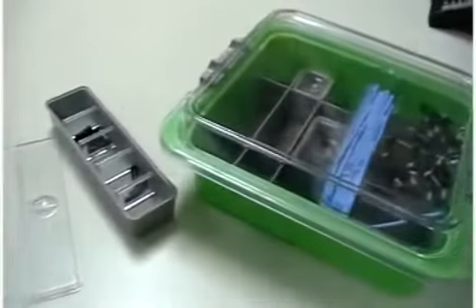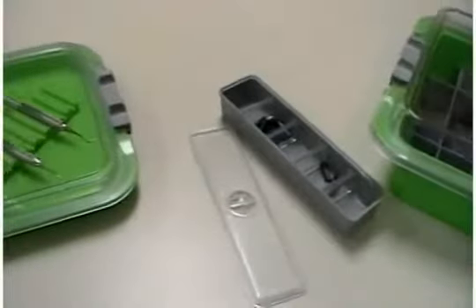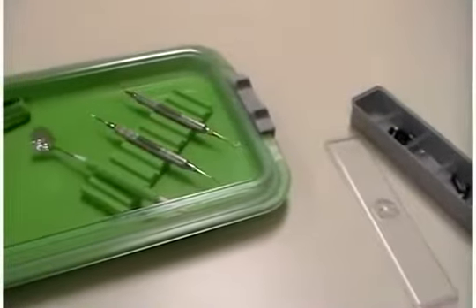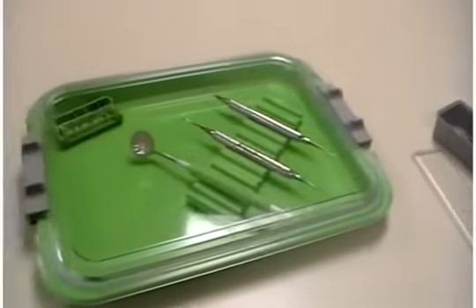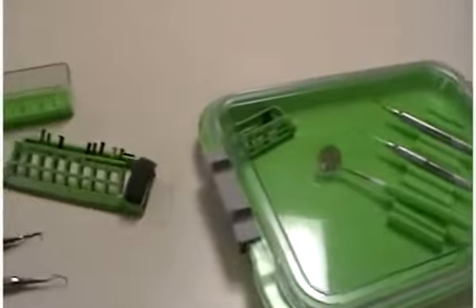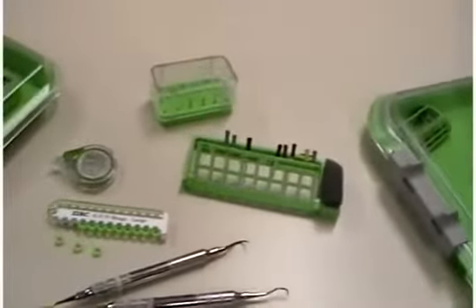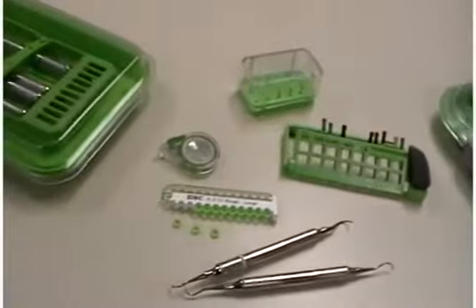It's simple to start. Assign a color to each procedure in your practice and then identify everything by placing it into the appropriate color organizer, such as a tray, tub, instrument cassette, or burr holder. Items that do not fit into the color-coded organizer can be identified by using color-coded rings and tape.